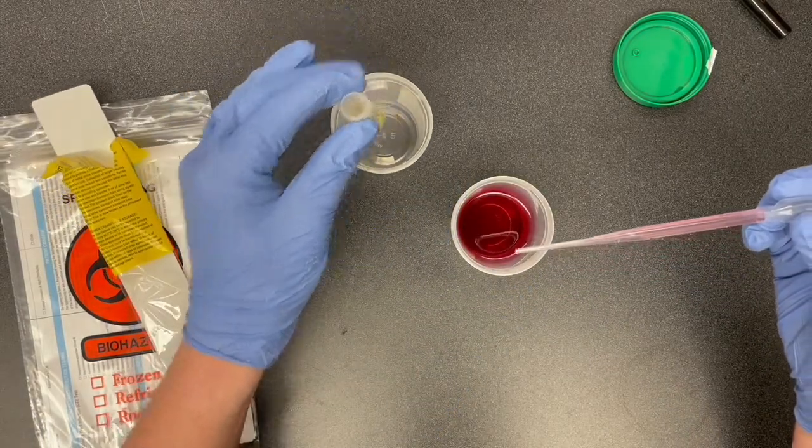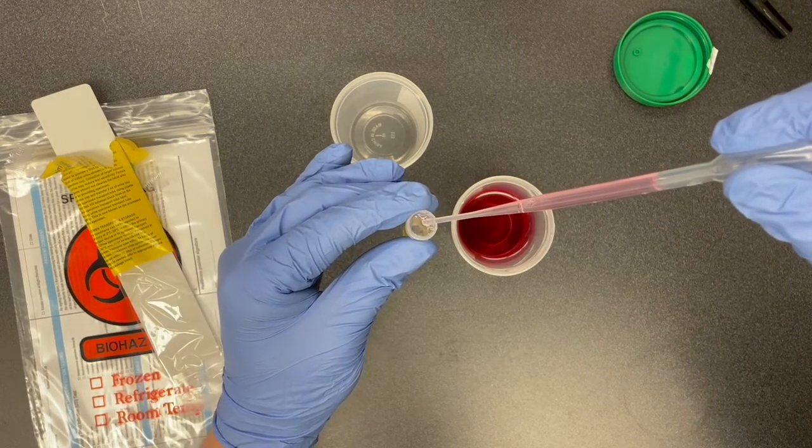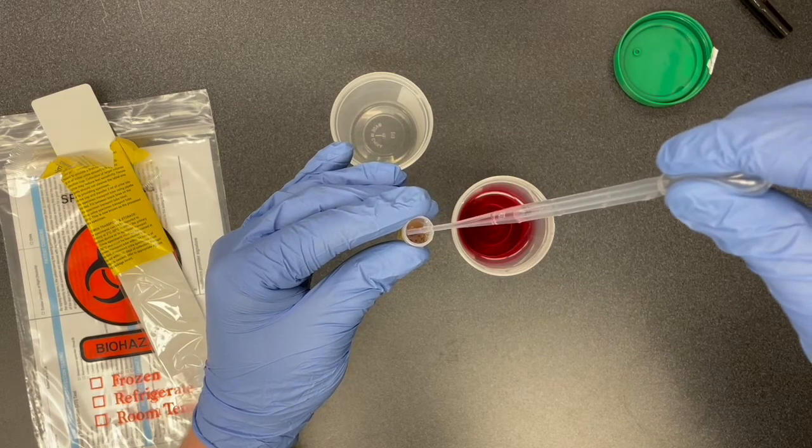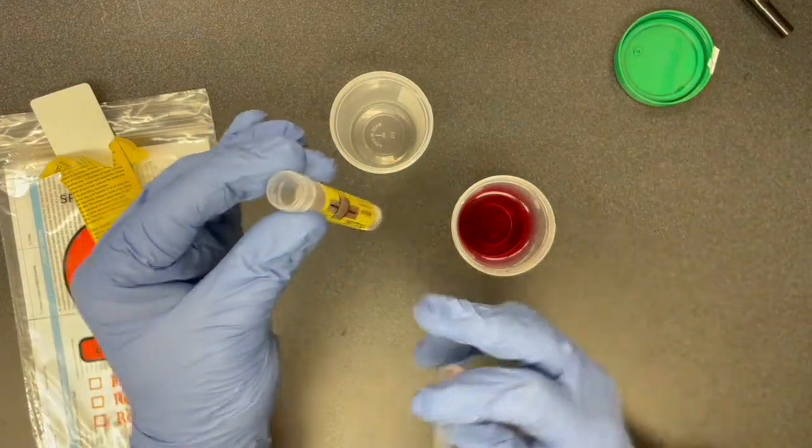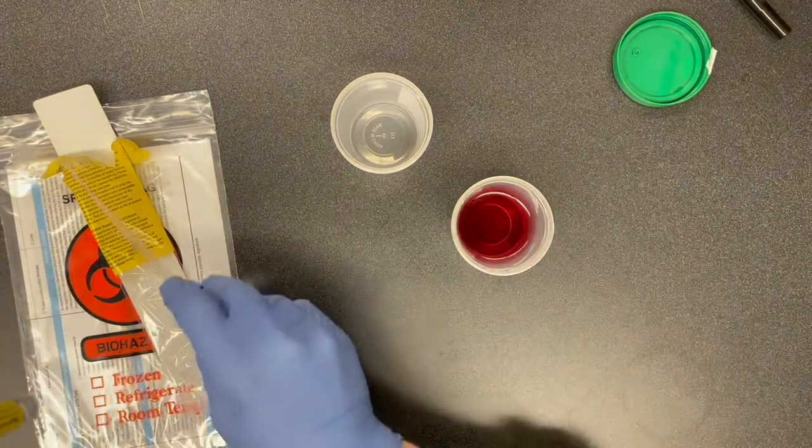We're then going to take our test tube and squeeze the bubble again to release our sample. Once you have filled the sample past that first black line, you can throw away your pipette.